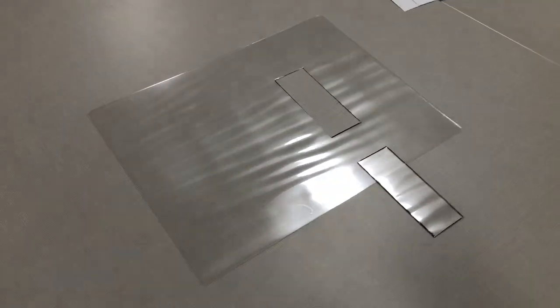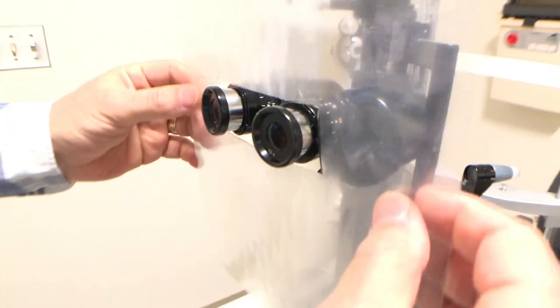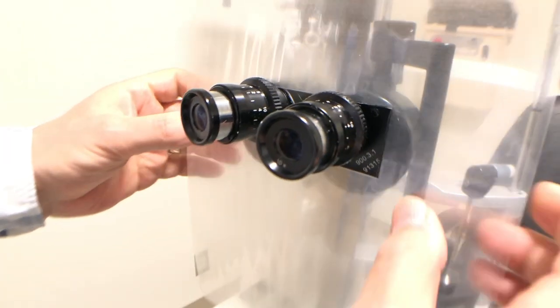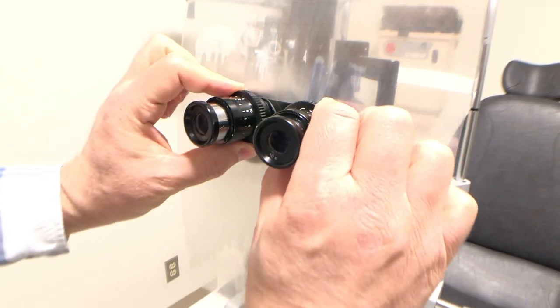And just like that, you have your final product, which can now be easily slipped over the oculars on your slit lamp, without having to remove any of the slit lamp components.